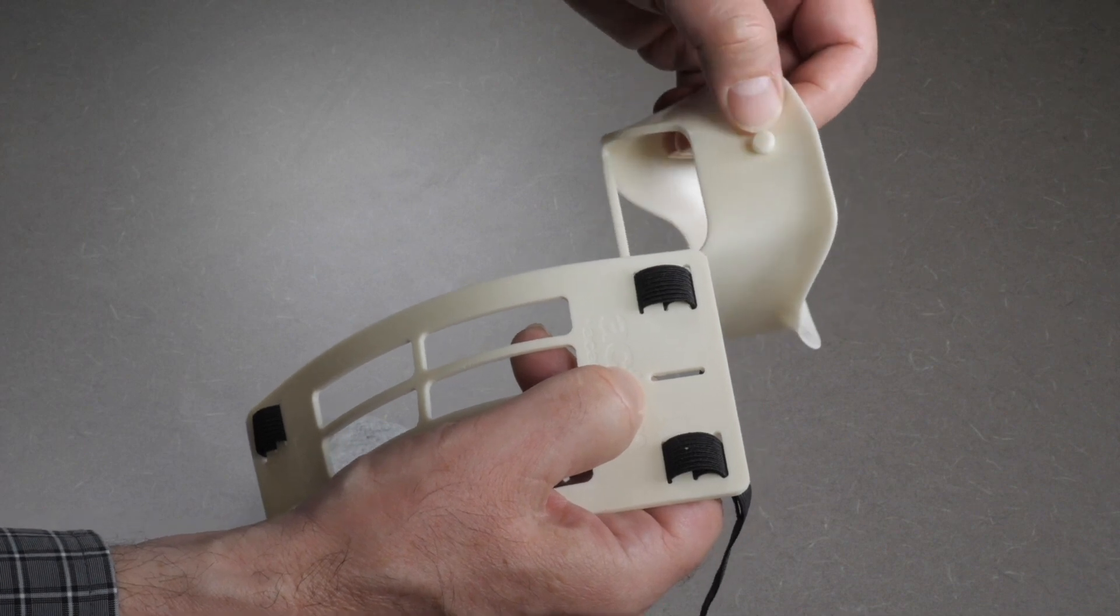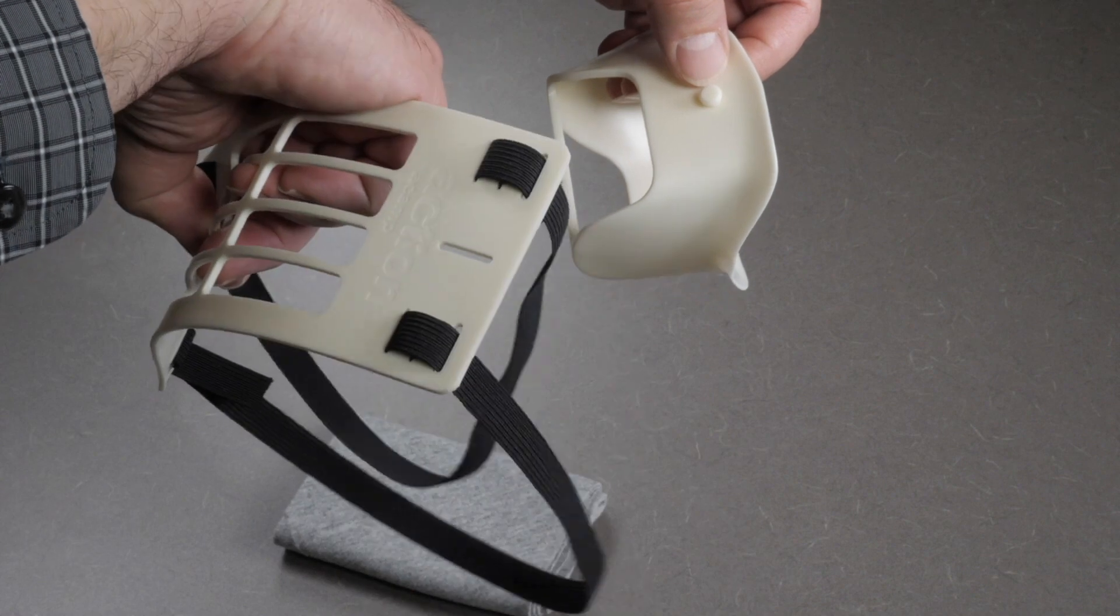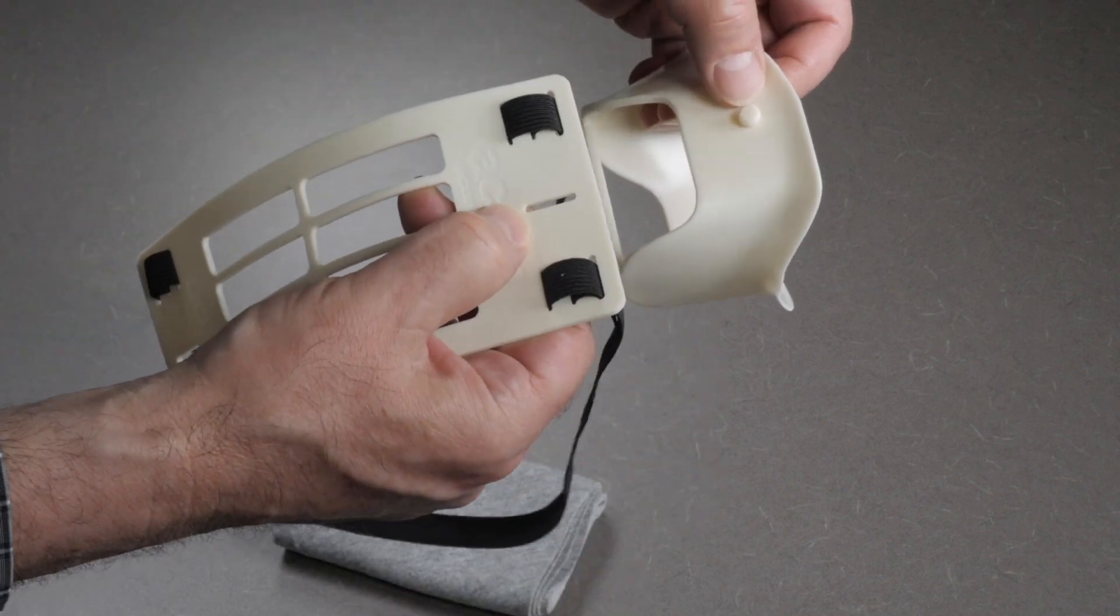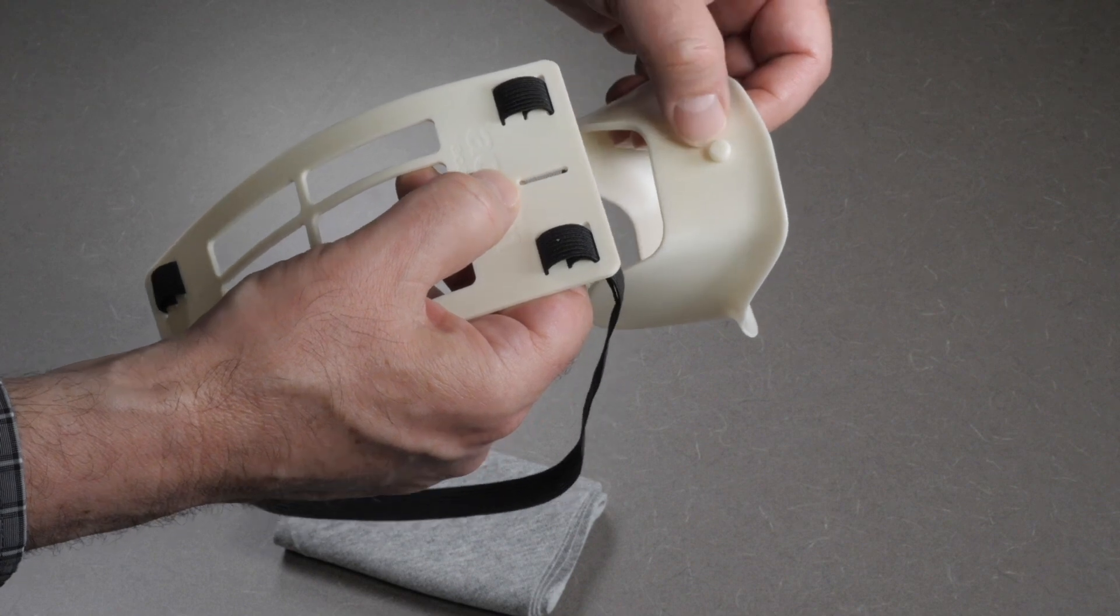There are two buttons on either side of the mask and two button slots on either side of the cover. The only trick is to fit the filter between the cover and the base. I like to assemble as follows.